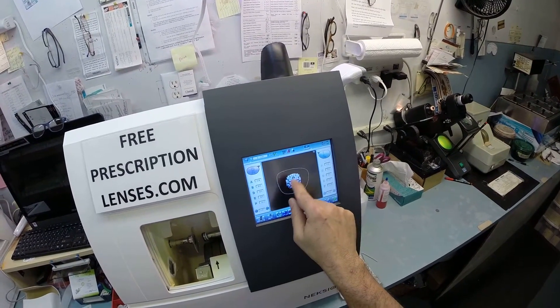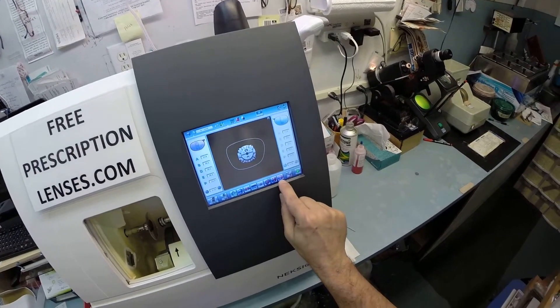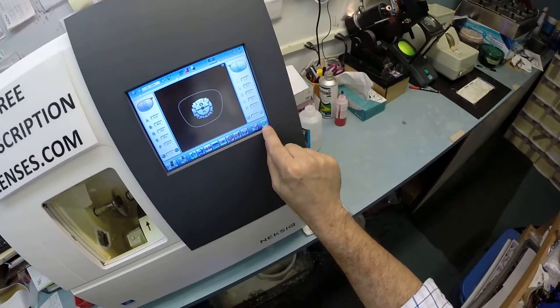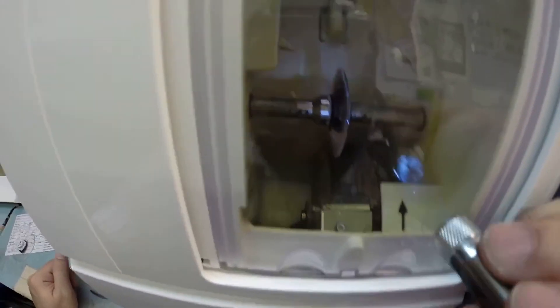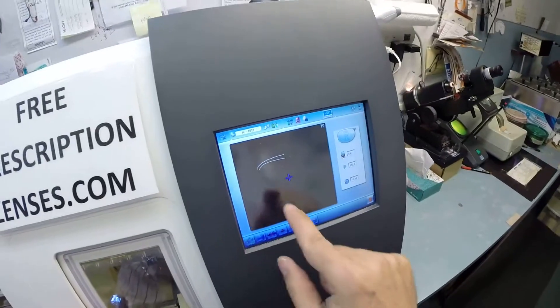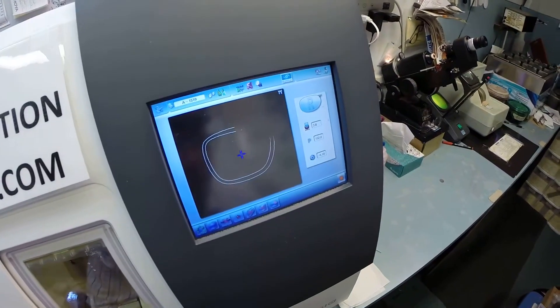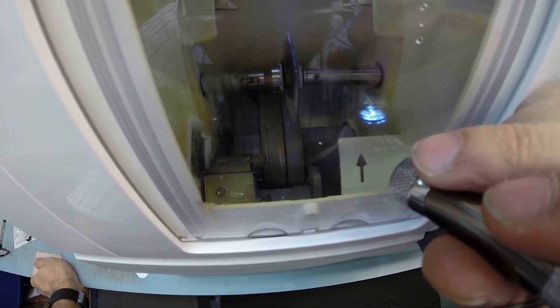Let's pull up the shape of your lens onto the computer. That is it. I'm not going to polish the lens. I'm not going to put a bevel on the front surface, only on the rear surface. That green arrow is the start button in every language. When I do that, the door closes, that clamp shuts, and then your lens is going to be traced by two white styluses. It's going to trace, make sure the lens is large enough to fit into the frame, of which it is. And of course, it's going around twice measuring the thickness of the lens at every point to know exactly and precisely where to place the bevel so you have no edge thickness whatsoever.